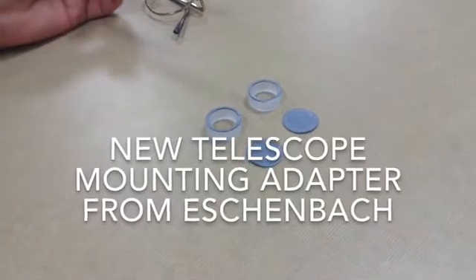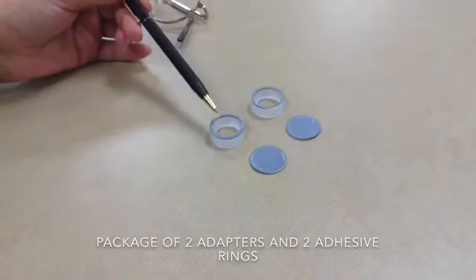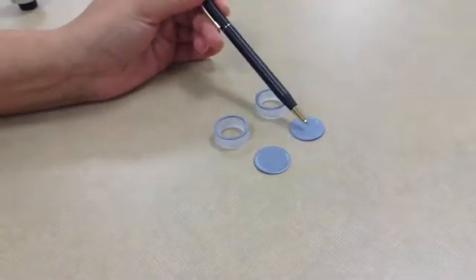Hi, we're here today to demonstrate the new Telescope Mounting Adapter from Eschenbach. It comes packaged with two of the Telescope Mounting Adapters, as well as two replacement adhesive rings.